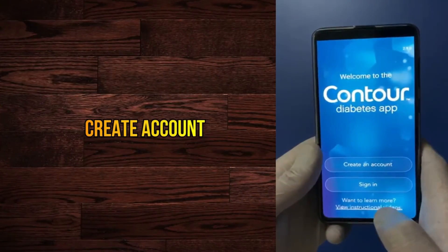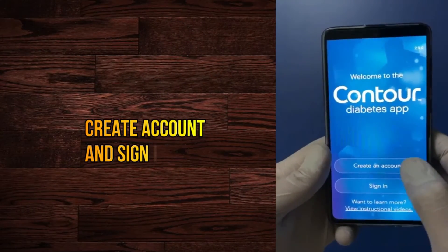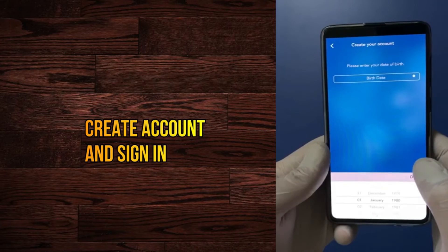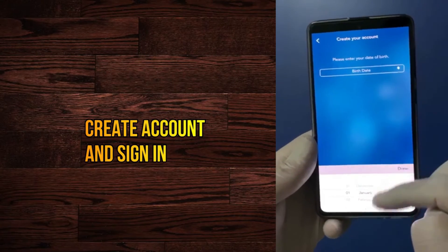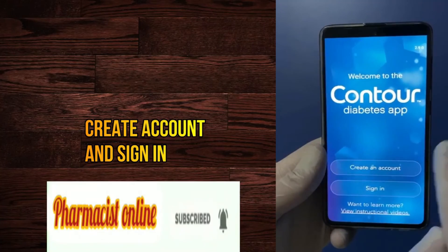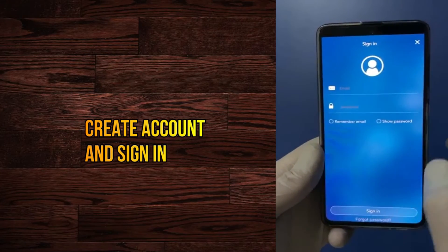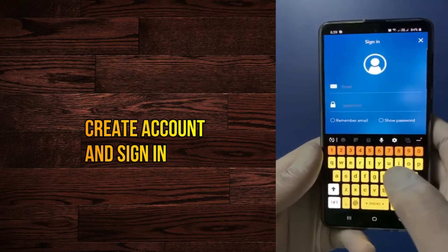After installation, create an account with your email ID. After creating the account, sign in.